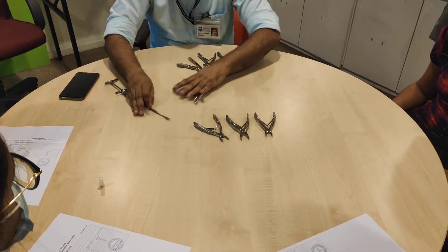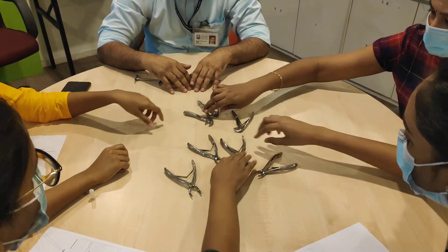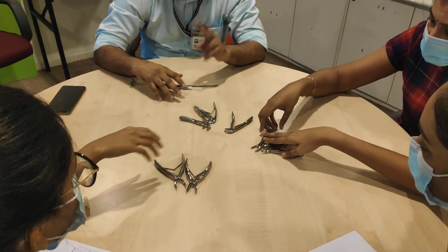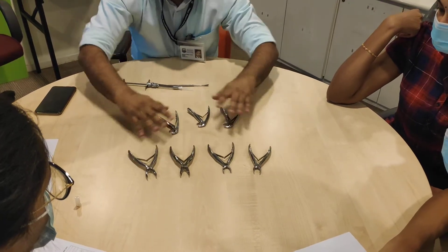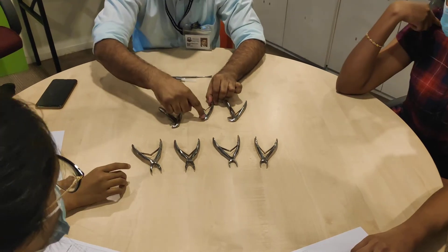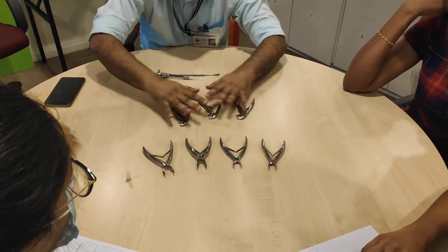Among all these, can you make two groups of similar looking forceps? So these are one group and these are another group. What is the difference between this group and this group? These forceps basically have their beaks at right angle to the handle, while these beaks are on the same plane. So these are for maxillary and these are for mandibular. When I give you a box and tell you to pick up a mandibular, you must pick one of these.